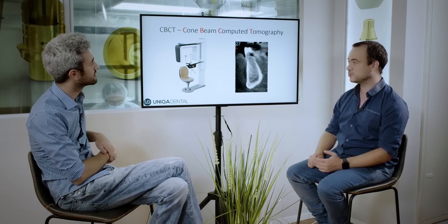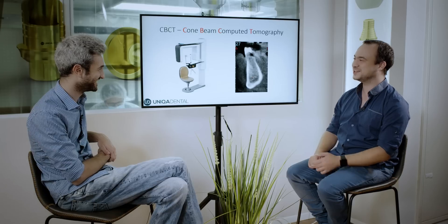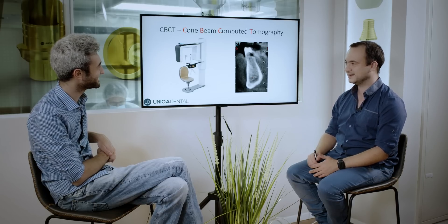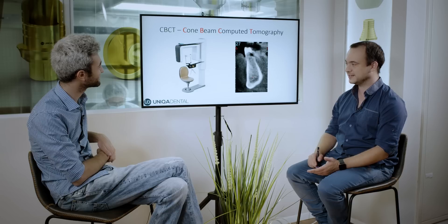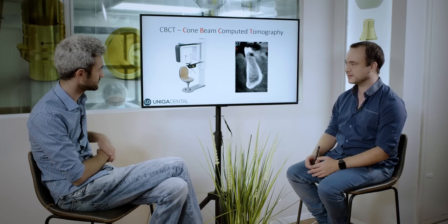It's a computer tomography. Can you say cone beam computed tomography four times faster? No. Just use CBCT, or you just use CT as in general medicine, but it's not the same thing.